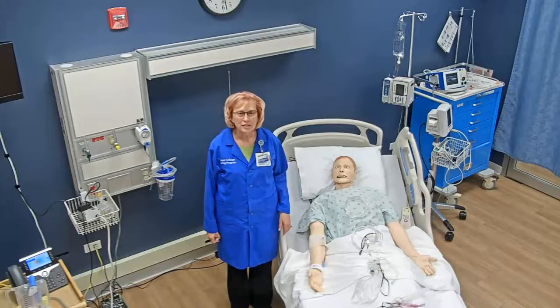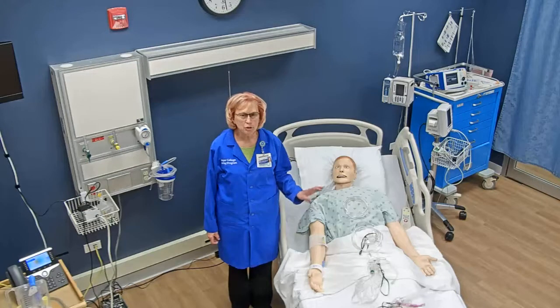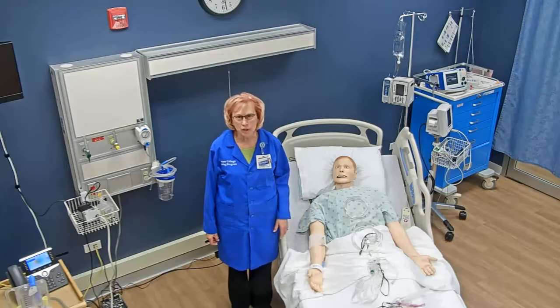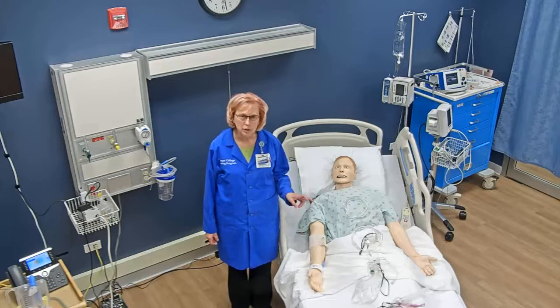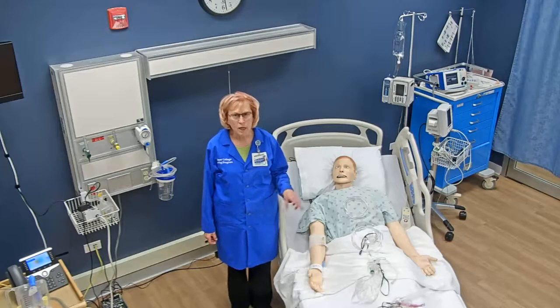Hello, this is Oxygen Administration. I'm going to show you several different oxygen delivery devices, explain when they're used, and also how to use them.